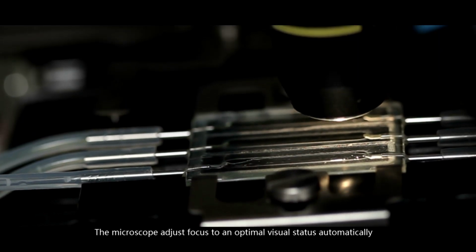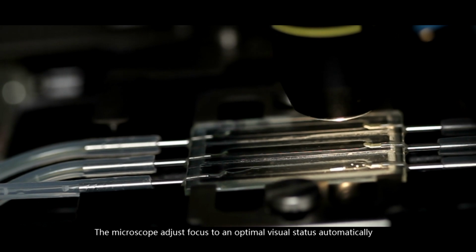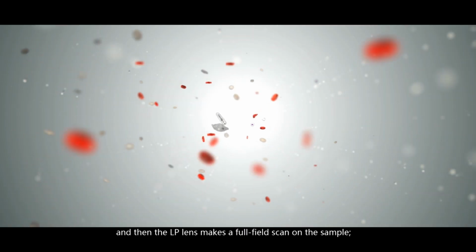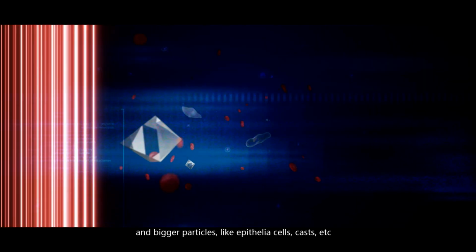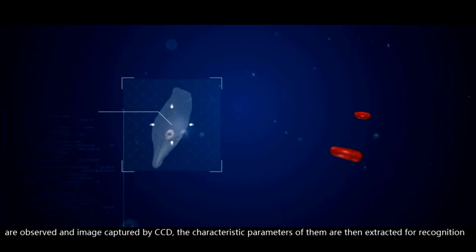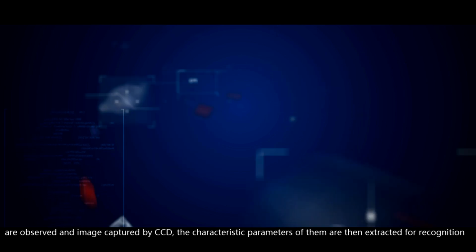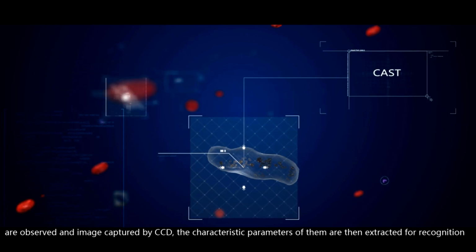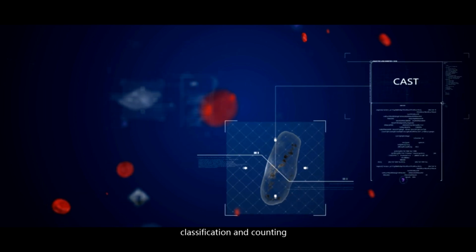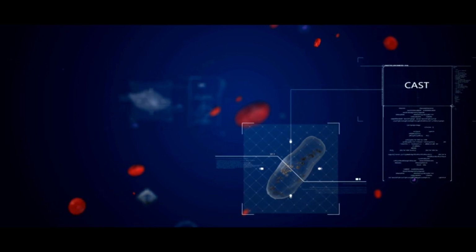The microscope adjusts focus to an optimal visual status automatically, and then the LP lens makes a full-field scan on the sample, and bigger particles like epithelial cells, casts, etc. are observed and image captured by CCD. The characteristic parameters of them are then extracted for recognition, classification, and counting.